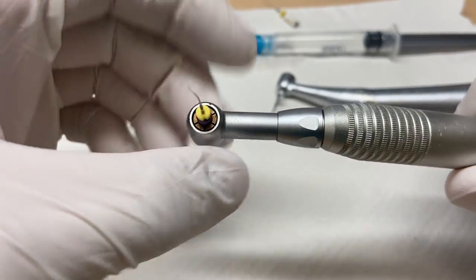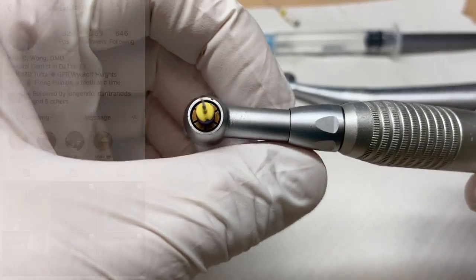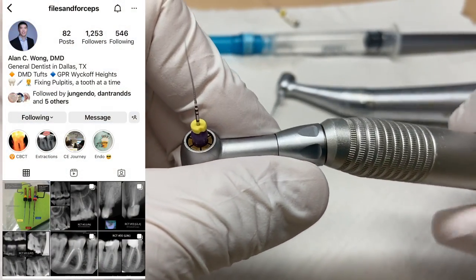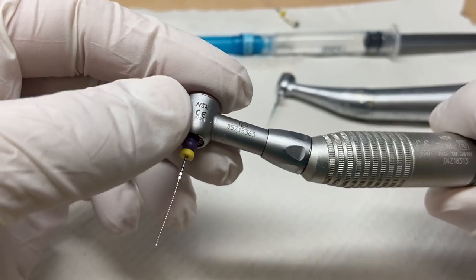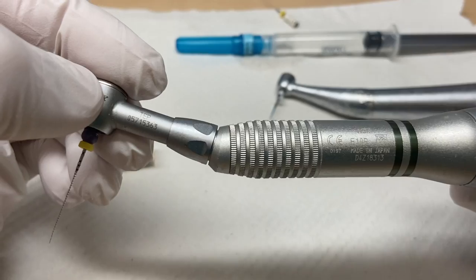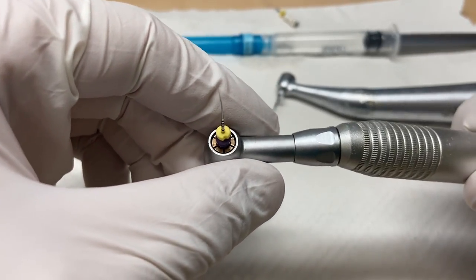This is one tool and I haven't used it for a while. I need to thank my buddy Alan, shout out to Alan, great clinician. You can check him out on his Instagram. He was asking me about the M4 handpiece. I was like, yeah, I have one. I haven't used it for a while. So I cracked it out the other day and I was like, man, I remember how effective this tool is.